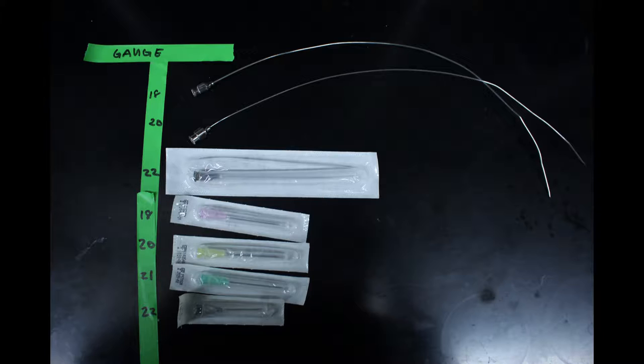When selecting a needle, you must consider both length and gauge. The larger the gauge number, the smaller the diameter of the needle.